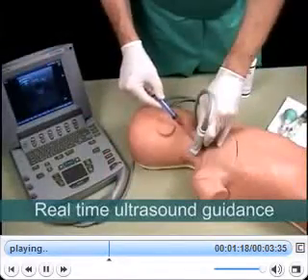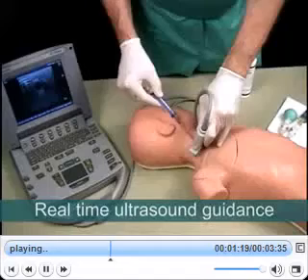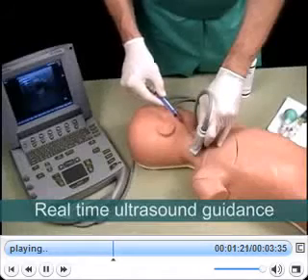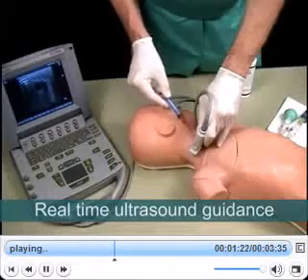In addition, this trainer allows the user to practice real-time ultrasound guidance during catheter placement.